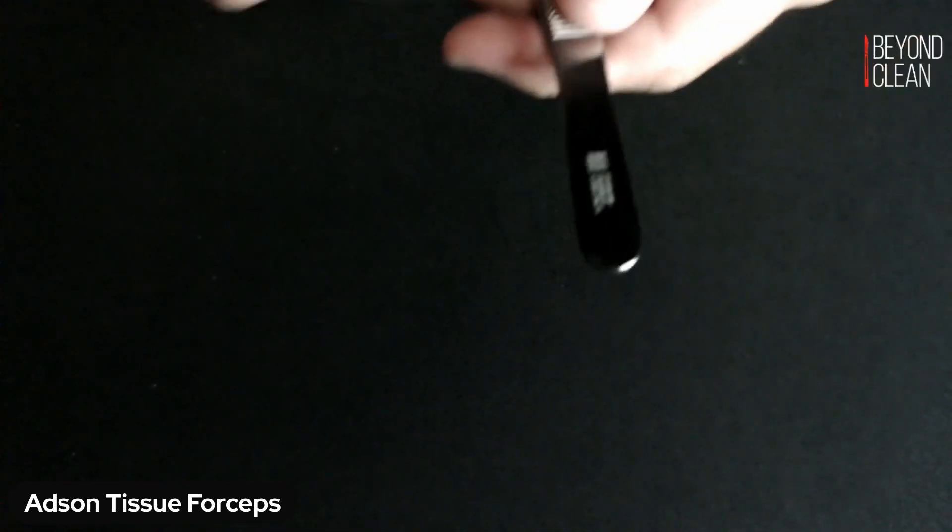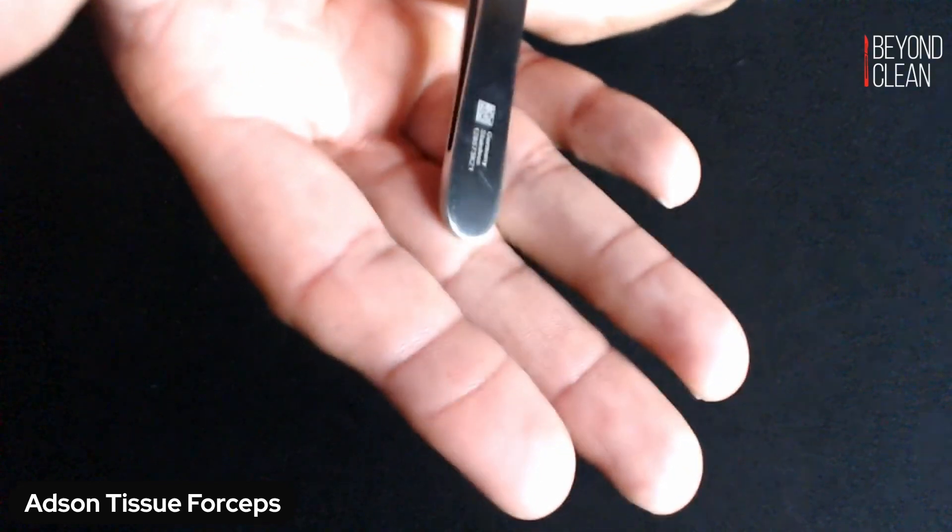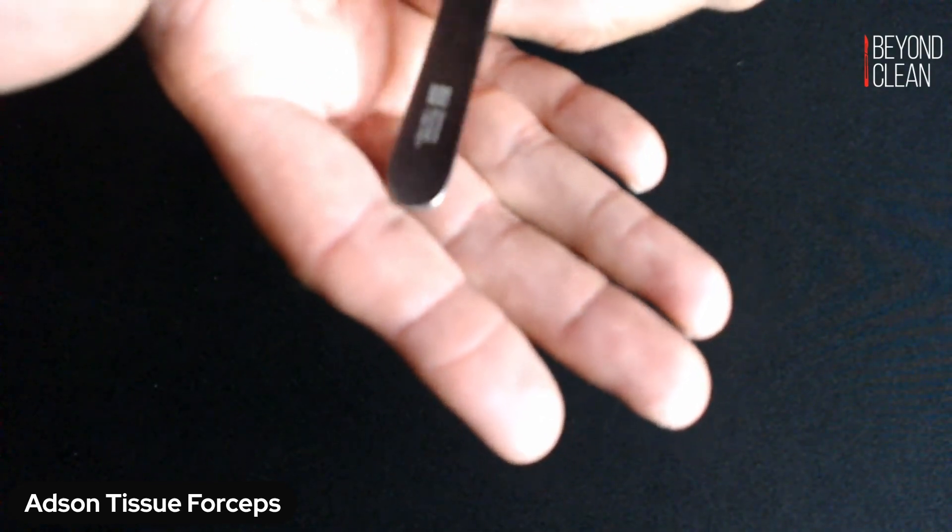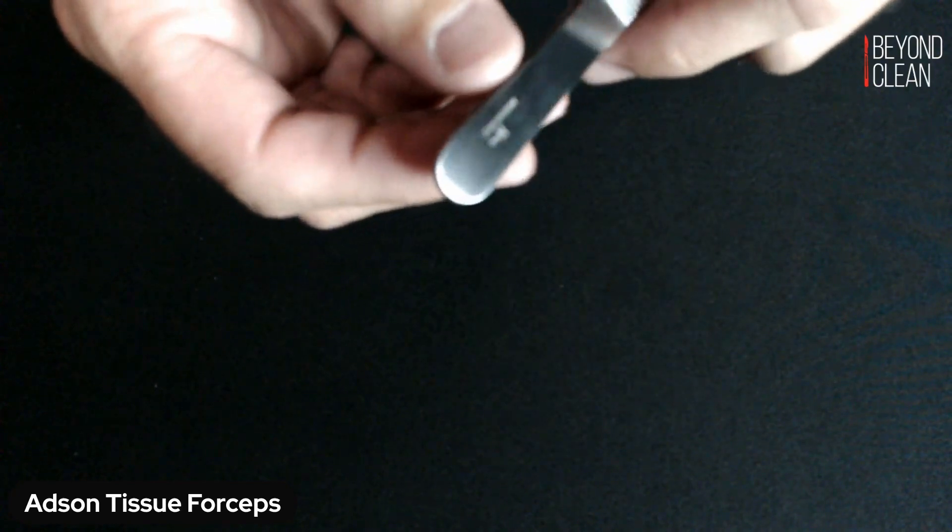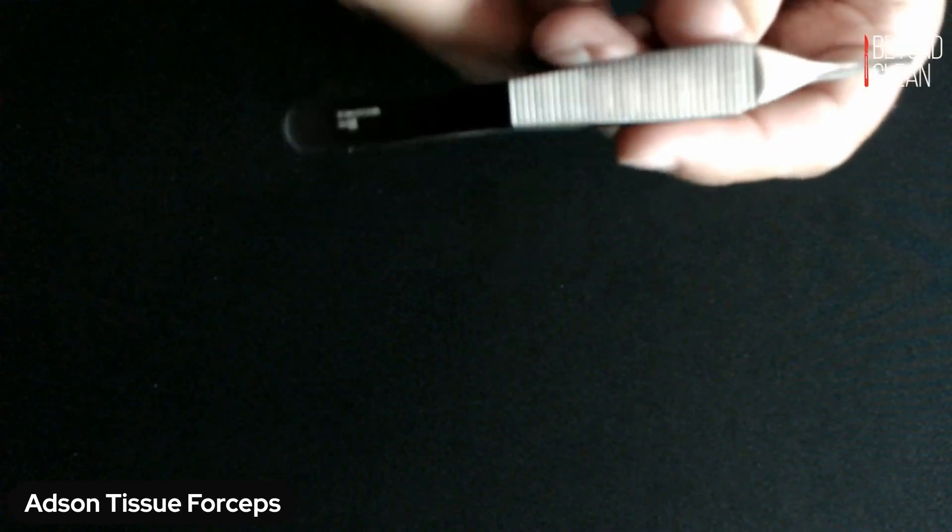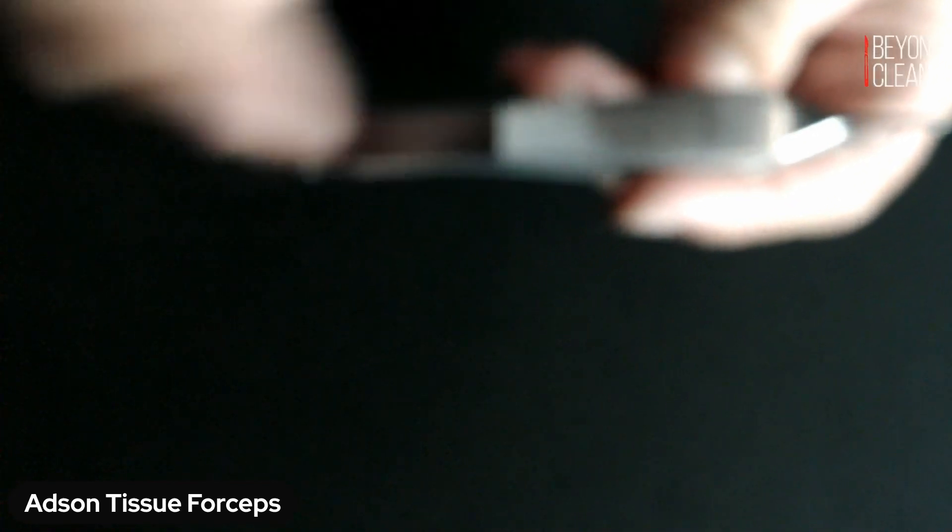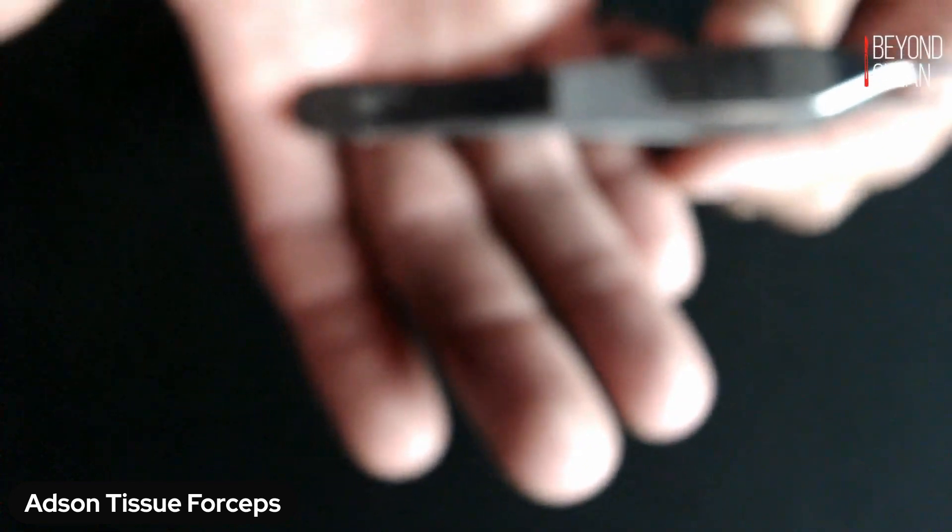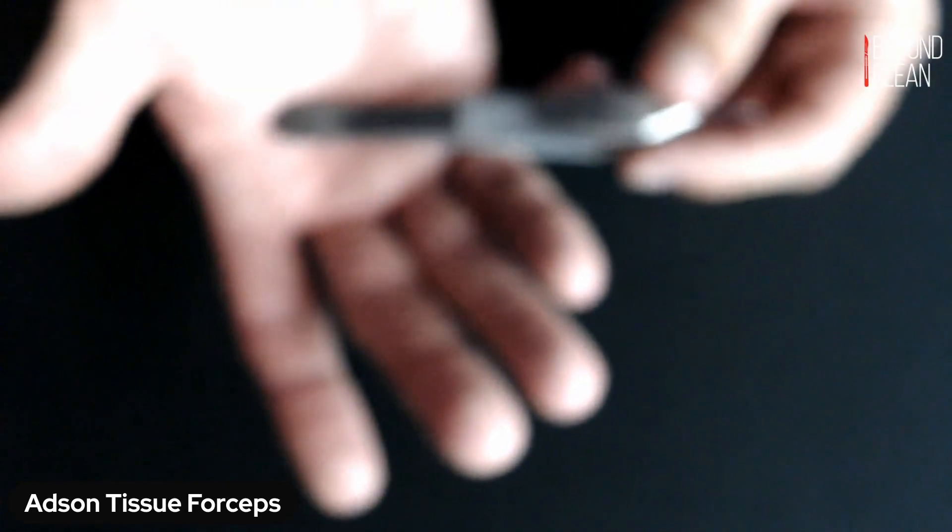And then also, you're going to want to look at that proximal end to make sure there's no cracking in that area because that's where all the tension is. If you use this over time, you're getting a lot of tension on the back end of that device.